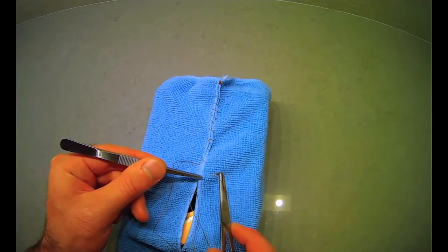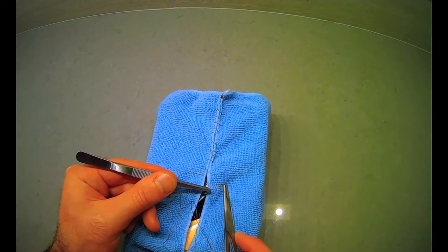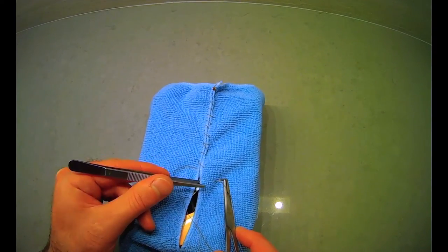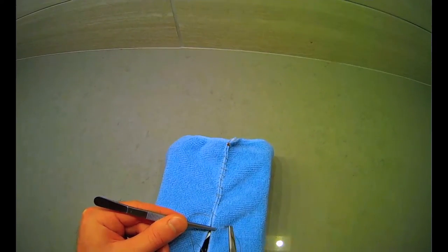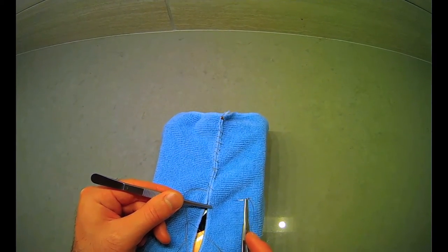But that's how you're going to do it in the operating room. I'm leaning in because of the camera, but don't pick this up as a bad habit, because you will get in trouble, and actually, you really will hurt your back if you're always hunched over like this. But anyway, I'm not going to recreate all of the wonderful suturing videos that already exist online. I'll link them in to show you the different types of sutures that you can throw.